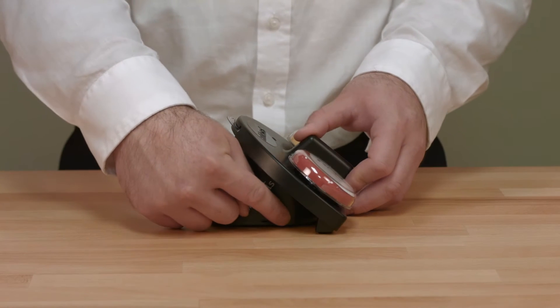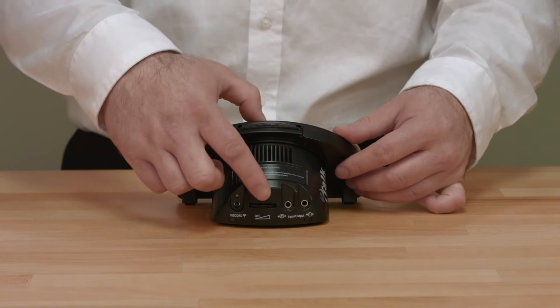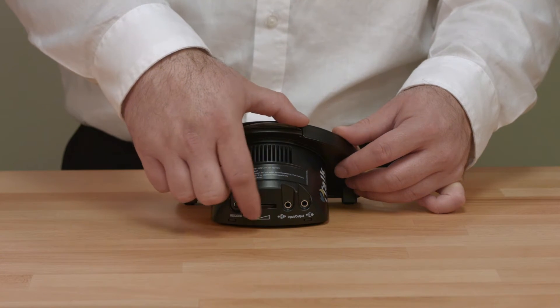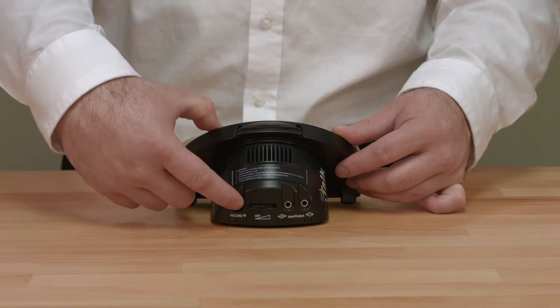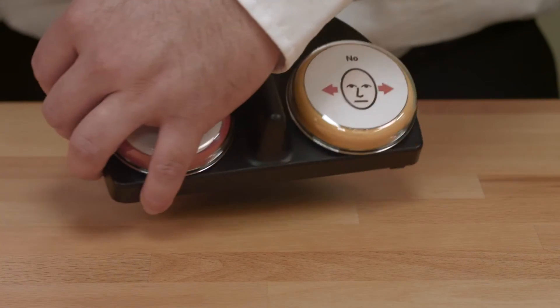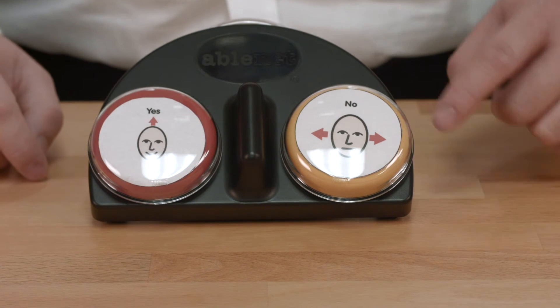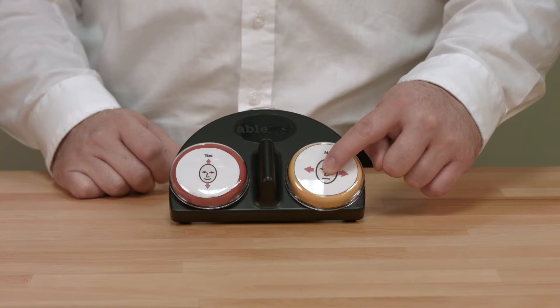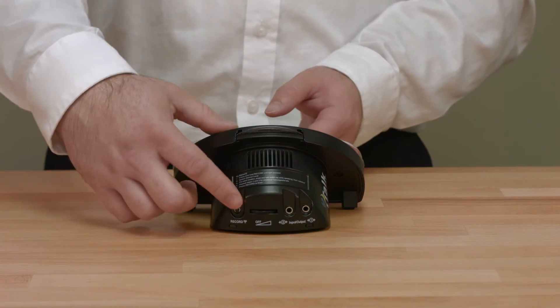To start the recording process, select the level you would like to record to. Turn your device on by moving the volume control to the on position and turning the volume up about halfway. Press and hold the record button until the red light turns on, then release the record button. Press and hold each switch top down until you hear a beep and talk into the device to record your message. When you are done recording your messages, press the record button again to exit record mode.